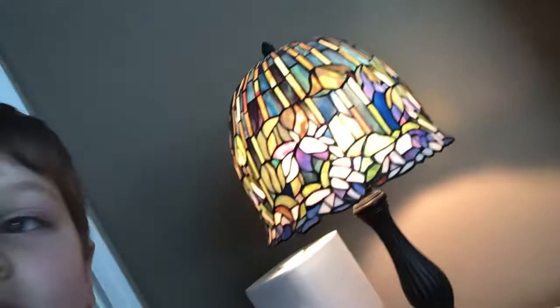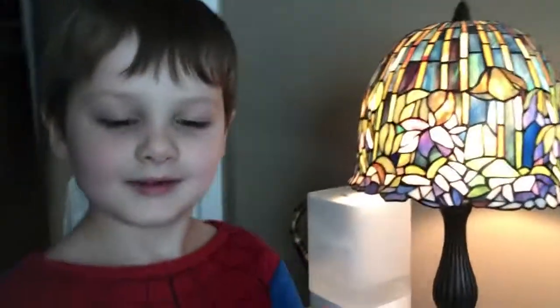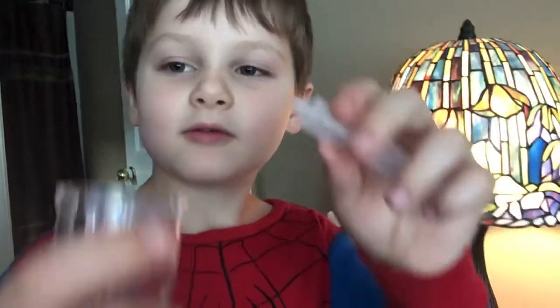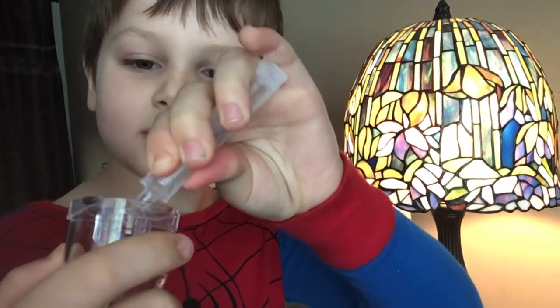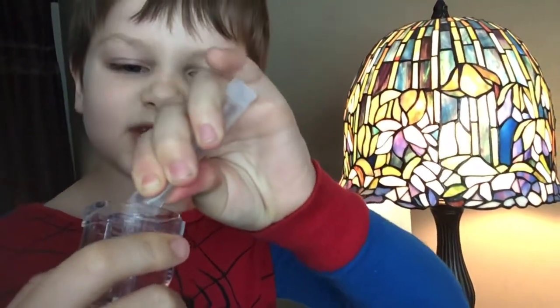Sorry guys, my ganggan wanted me to hold this. Here you go. Hold this. Now here we go — pour it in, just squeeze. Squeeze hard, get it all in there.